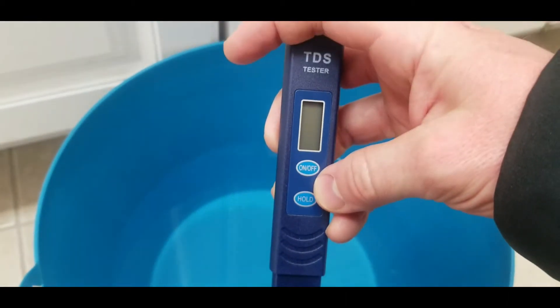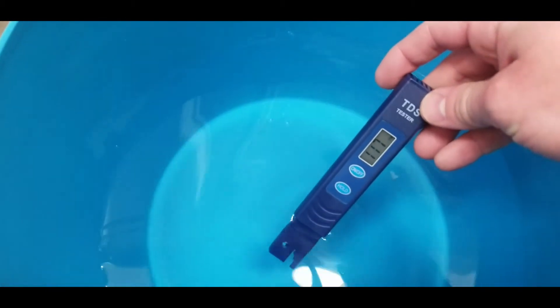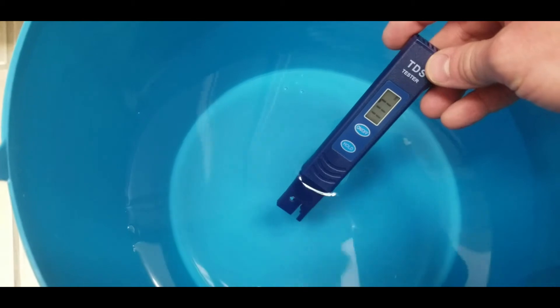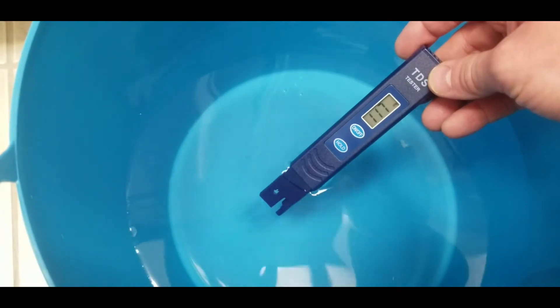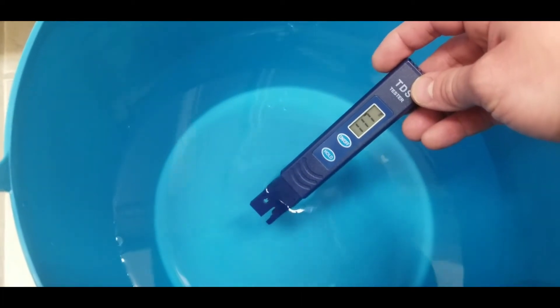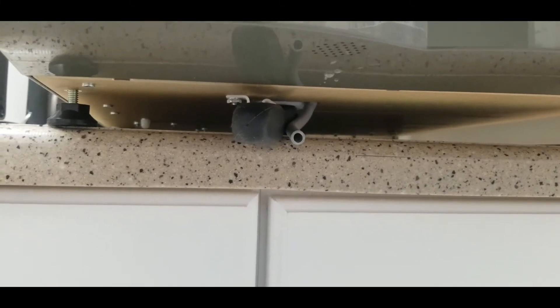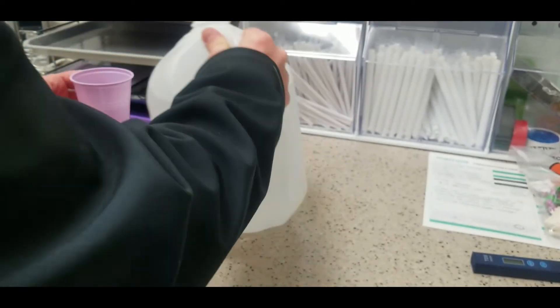This is the water we drained out of the Statim. Turning on my TDS reader and sticking it in, it's showing about 117 — probably high because there may have been dust or mineral particles in the bucket. When it was in the autoclave it was at a TDS level of 75, which is not acceptable. We drained it using the drain below the Statim and are now going to run distilled water through to flush out any remaining particles.